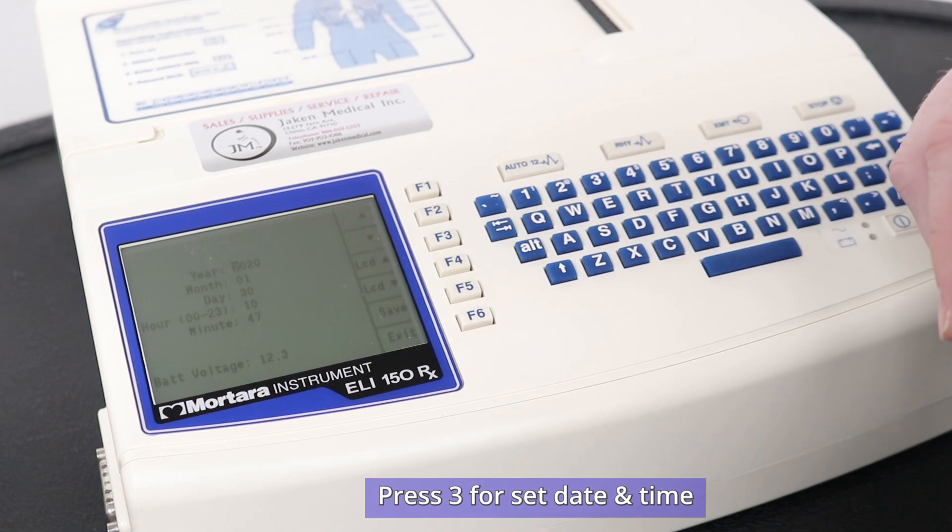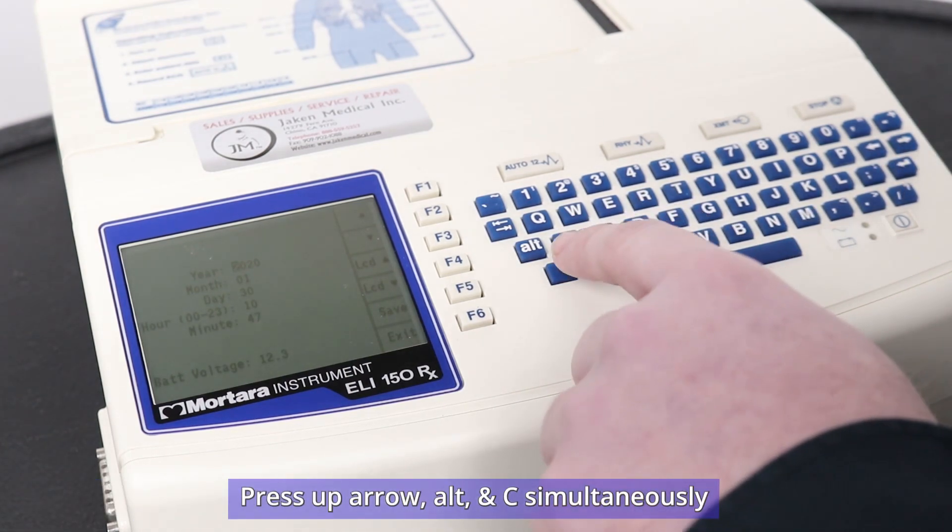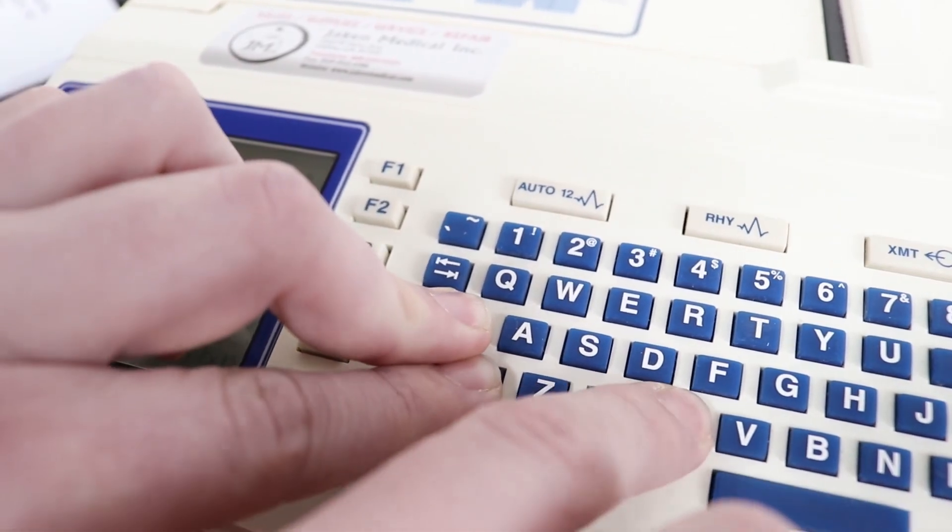Once on the screen, you will need to press the following combination of buttons: the up arrow here, alt, and C.